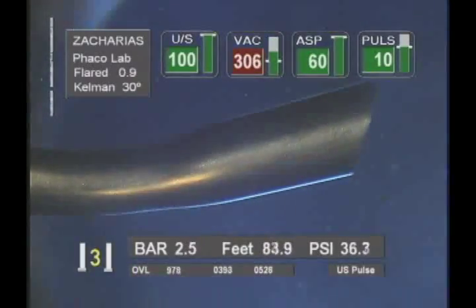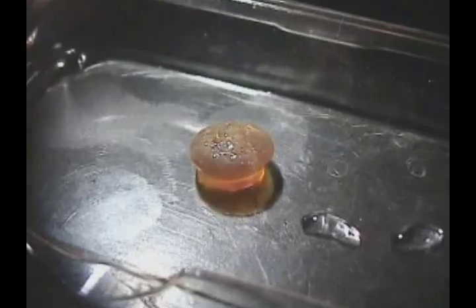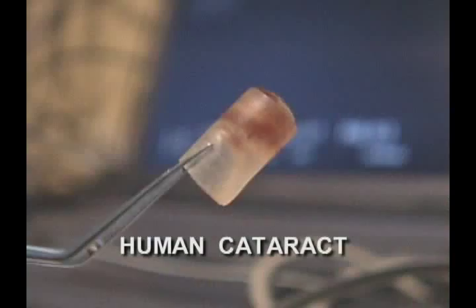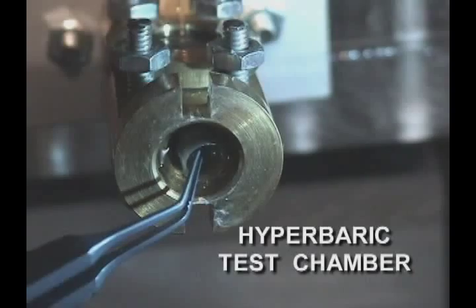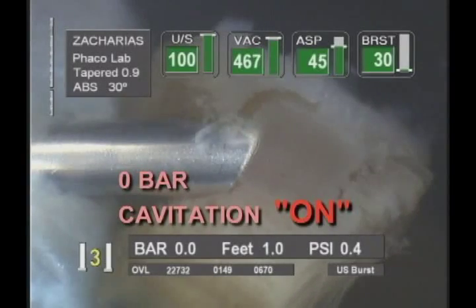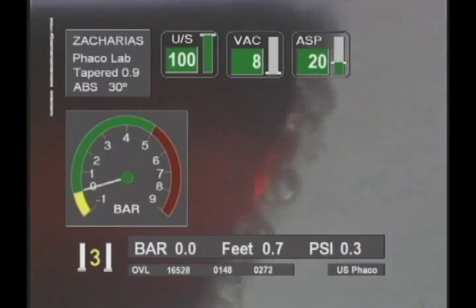Having first documented cavitation and second totally suppressed it under hyperbaric conditions, our next and final step was to test the efficacy of phaco with cavitation fully inhibited. We performed a series of experiments with real cataract fragments, developing a technique to feed lens fragments to the phaco probe at both ambient and hyperbaric conditions in a controlled manner. Part of these experiments involved punching a cataract fragment with a lightweight tube to obtain a cylinder of tissue placed inside the test chamber in direct contact with the phaco tip. Pulses of ultrasound were delivered alternating between normal and hyperbaric conditions, allowing careful comparison of cutting action with and without cavitation on the same material.